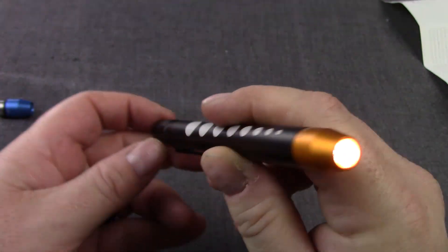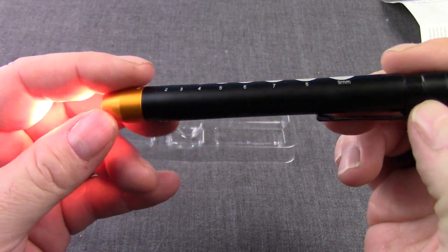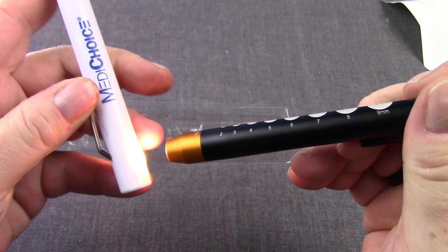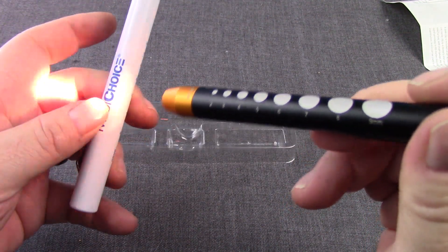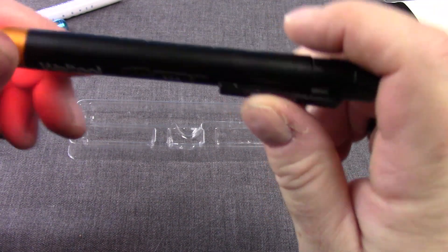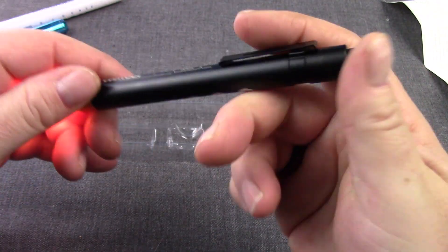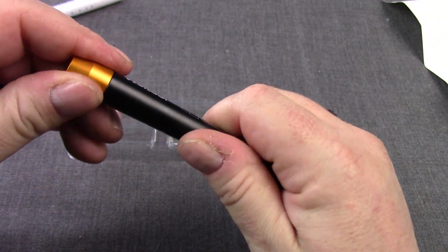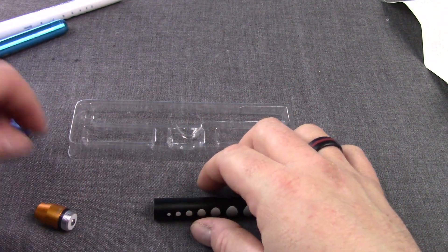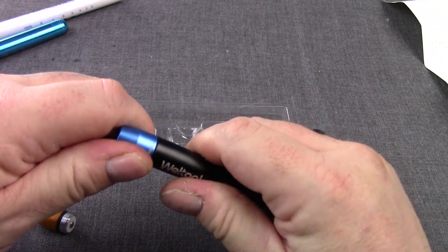That's with the xenon head in there. You get an idea of how warm that light is. It's a very nicely made light, especially when you start to compare it to its competitors, which are really cheaply made. It's a super nice light. Just the anodizing is really nice, the head is really well made, the clip is nice and strong, and the button pushes are really positive. It does come with a few batteries as well.